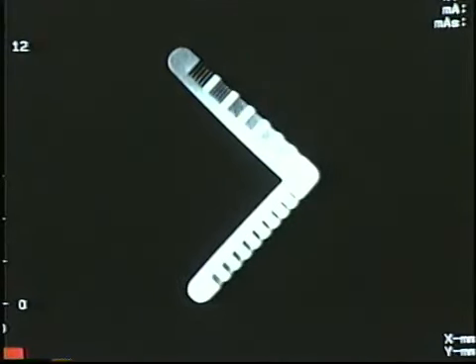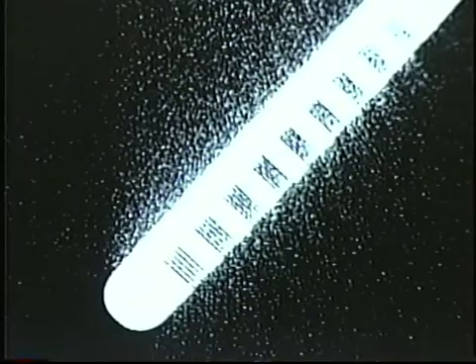The high-resolution sections offer visual tests of resolution. In the 412 and 424 models, the high-resolution tests range from 5 to 11 line pair per centimeter on the upper side and from 12 to 20 line pair per centimeter on the lower side. The 500 model's test gauge ranges from 1 to 21 line pair per centimeter. In this test module, the gauge is set in a radial layout with a minimum use of material. This reduces artifacts which might distort the data created by the MTF bead, which is cast into the same section.